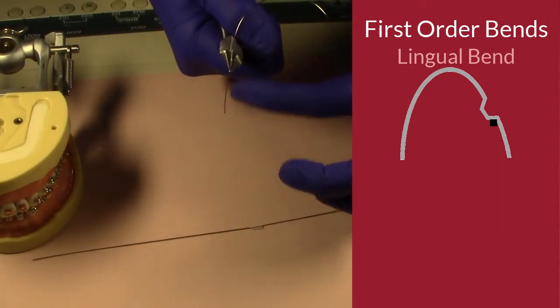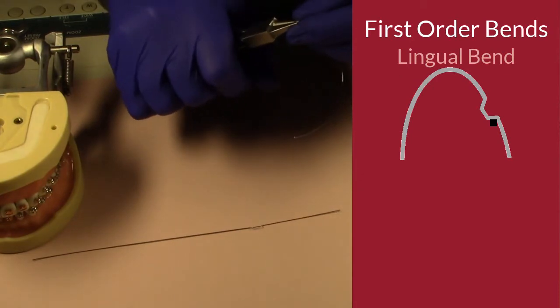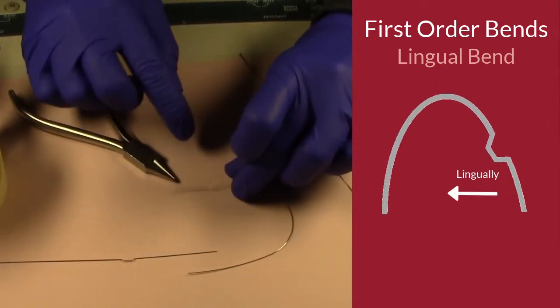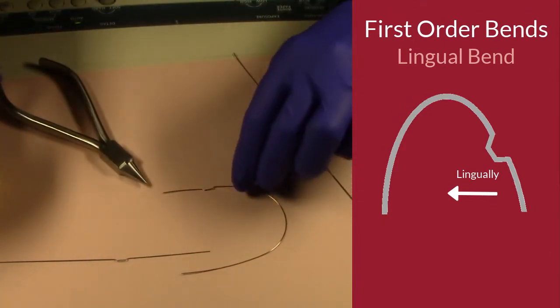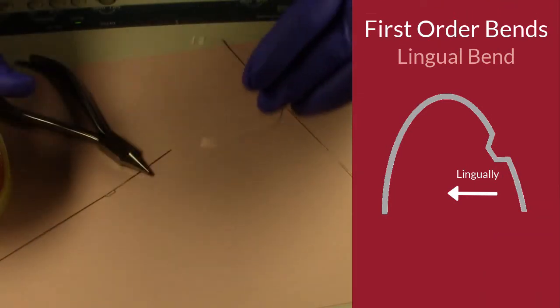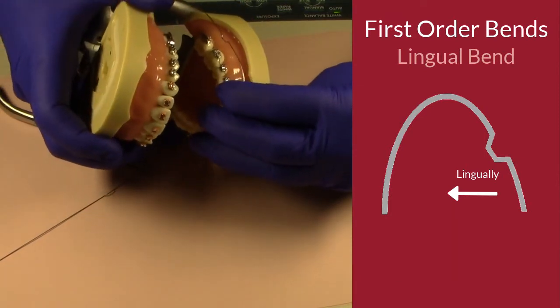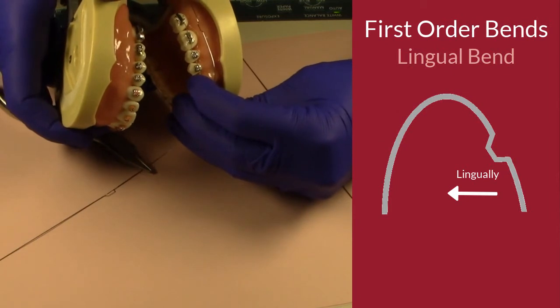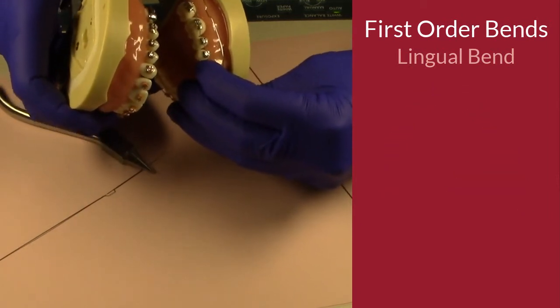And now you can see it's back in the same form basically that it was at the beginning. So now you can see that I have a lingual bend. That bend is going towards the tongue. If I were to place that on the actual typodont here, you can see how that bend would be going in toward the tongue. Okay, so that's a lingual bend, and that's one type of first order bend.